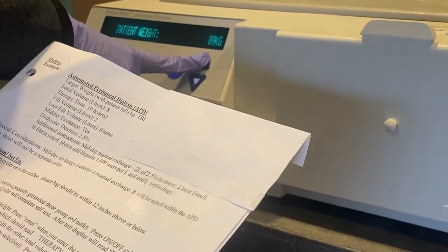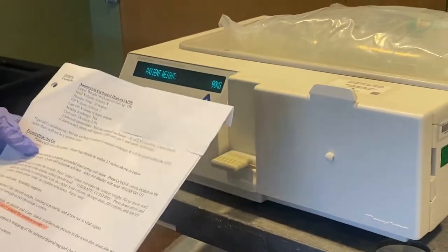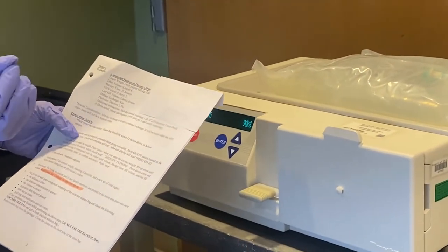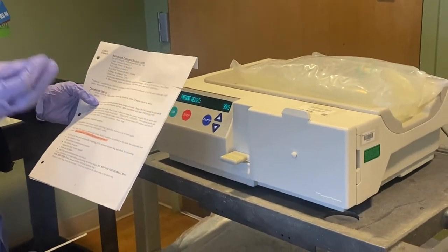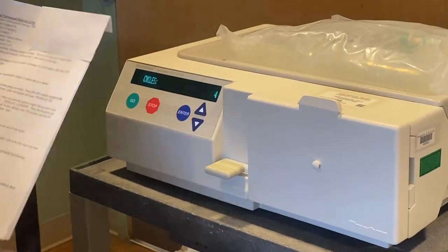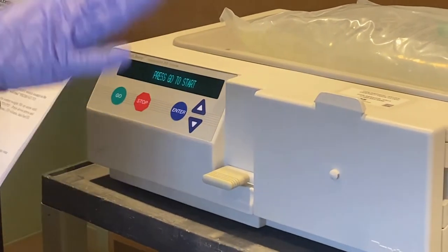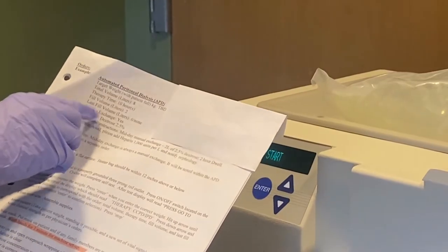This is where we enter the weight obtained before we began setup. In this case the patient weighs 90 kilograms. Depending on whether the patient had a midday exchange during the day, we want to place an initial drain alarm. This alerts the machine that there is already previous fluid in the patient. The machine automatically calculates cycles, dwell time, and everything — the only things we input are the settings listed on our order.